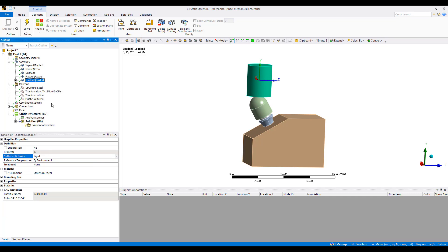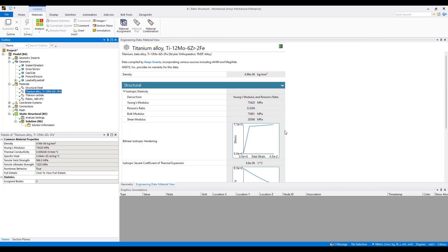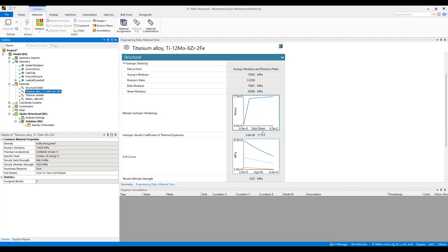The material properties are all set. If I go into the material section you can see that my titanium material has an isotropic hardening model as well as fatigue curve, so we can easily calculate the fatigue characteristics of our implants.